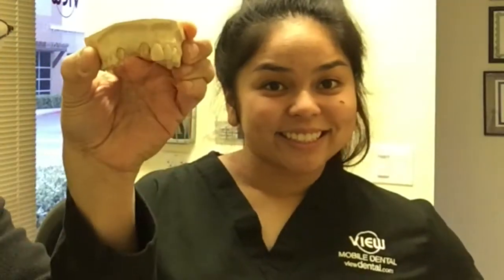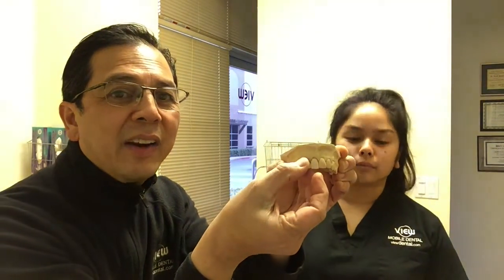If you have to go to work and you want to smile, you want to make sure that you put this back. Now, if the bridge comes off, you could put it right back. But what will happen is this will fall out every time you talk, and then you're missing a tooth right there.